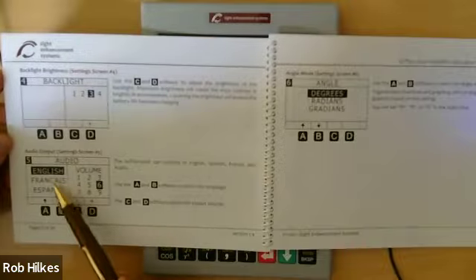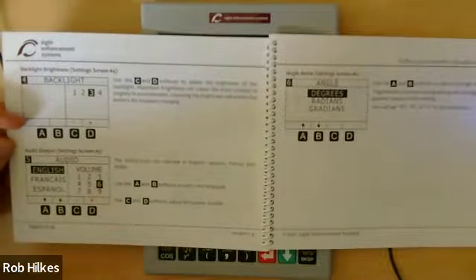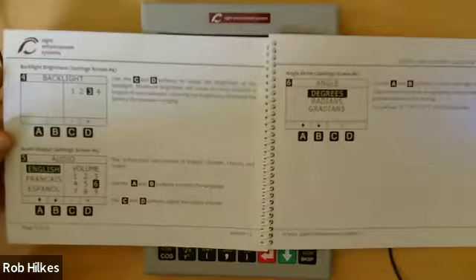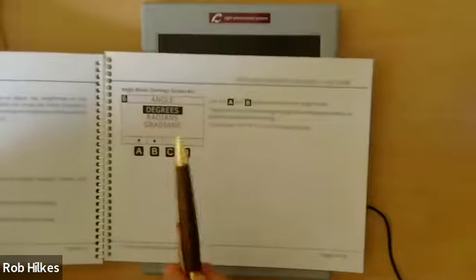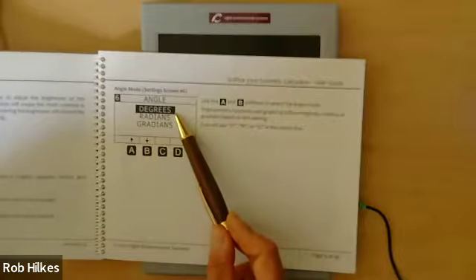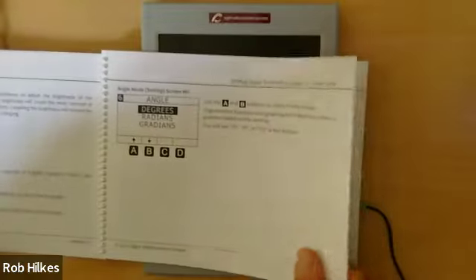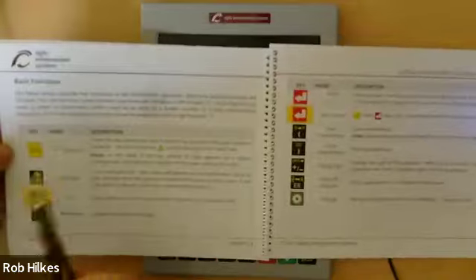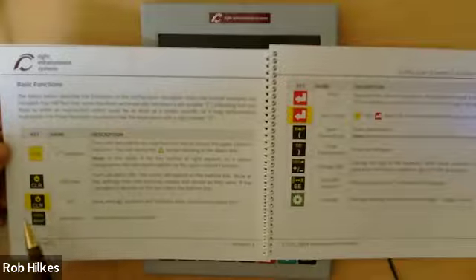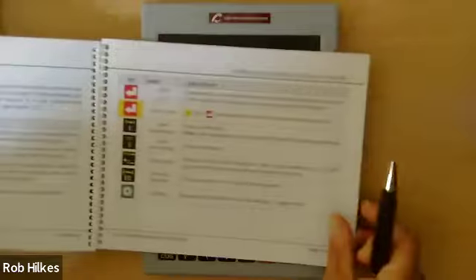And then, as I said, English, French, Spanish, and you can set the volume level on the earbuds because not all earbuds have a volume control in the wire. And lastly, the last setup screen is the angle preference. So almost everybody chooses degrees, but if you're a scientist or an engineer, you would know what radians and gradians are. Those are different ways of indicating angles. And then the calculator manual starts to get into, key by key, we explain what that key does for every key on the keypad.